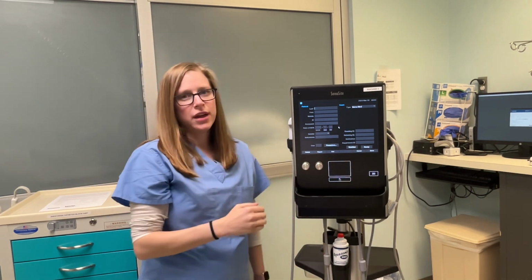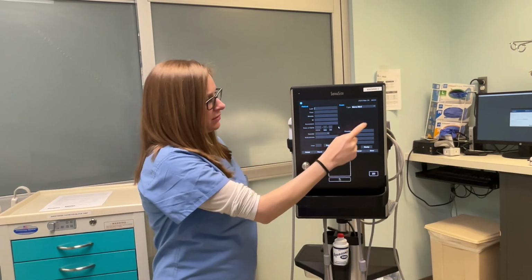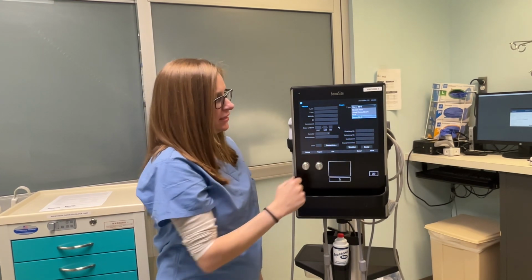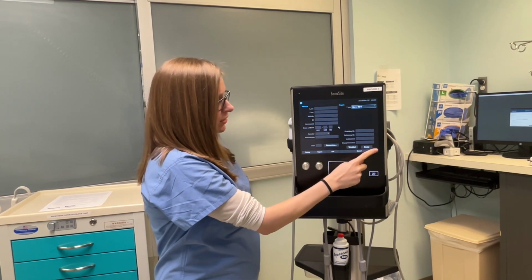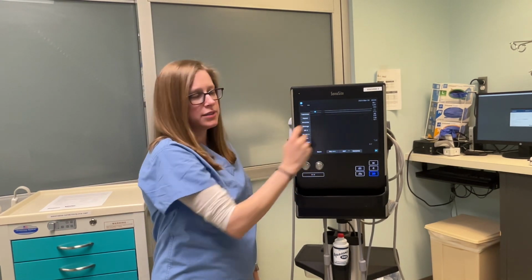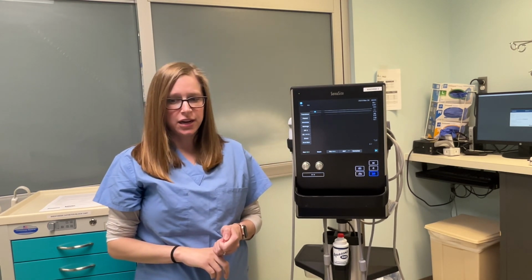Pressing query will then bring up the patient information on there and you'll select the patient. The other important step is to make sure that this is on the nerve block. It is the default setting, so you just want to make sure that it's on the nerve setting. Once you've clicked on the patient, you can click done, and the patient's information will be displayed on the top of the board here. Make sure that it is the correct patient information that's there.